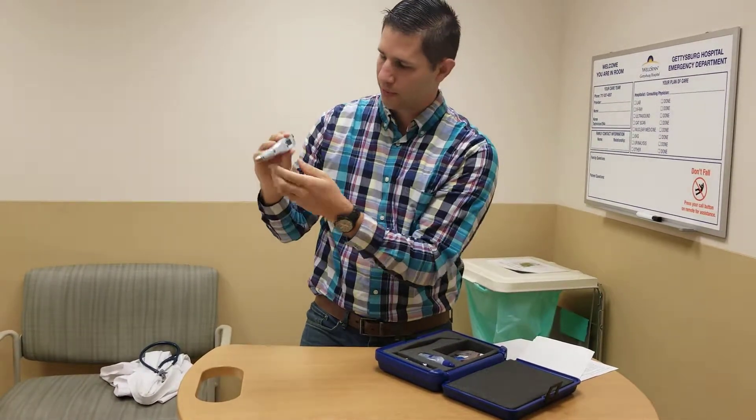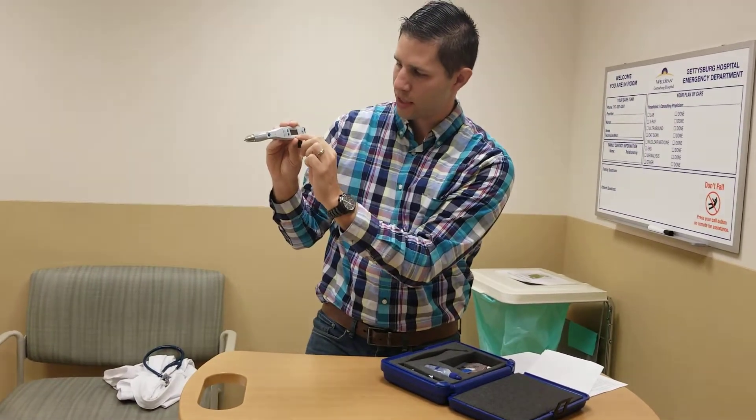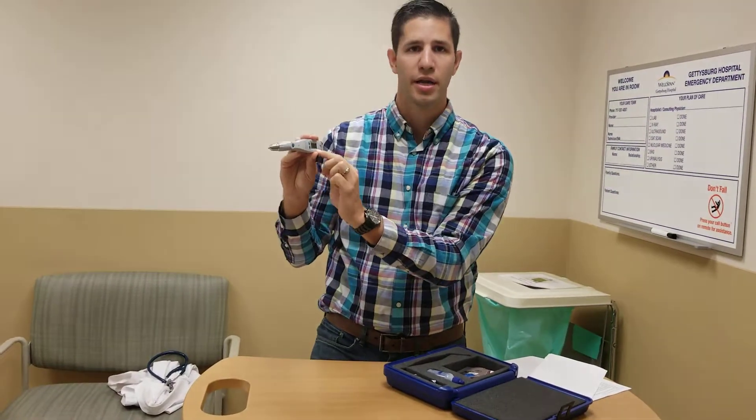You can now look at the screen. If calibration was successful, there'll be a number at the bottom — in this instance it's 339. The actual number itself doesn't necessarily matter; it's just the relative constant for the calibration. If it says error, you should repeat the process.